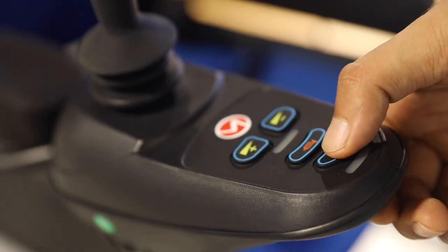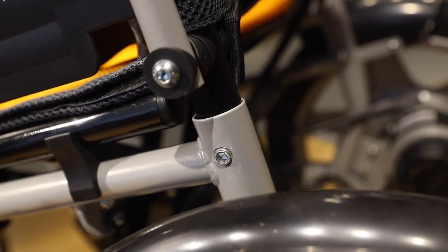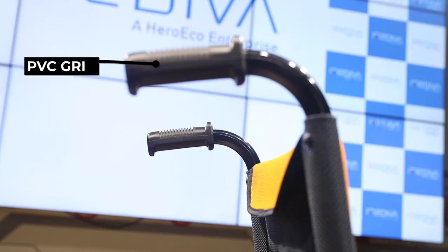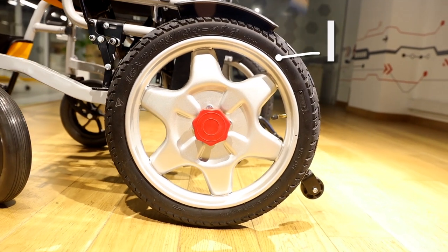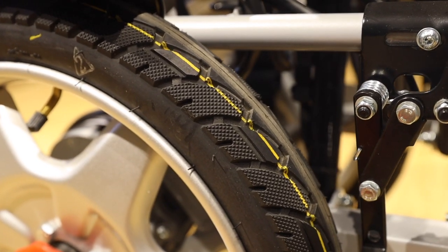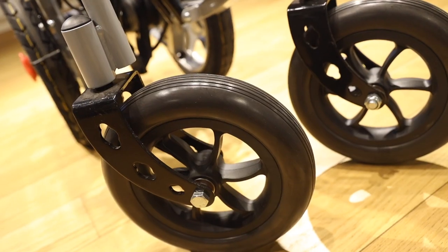You are now ready to operate your electric wheelchair. The Mediva Electric Wheelchair frame comes with a robust, reinforced double cross design to ensure extra durability and safety. The push handles come with a PVC grip. The 16-inch rear wheels are for ease of manoeuvrability on all kinds of surfaces. The solid rubber front wheels of 10 inches are created for excellent control and stability.